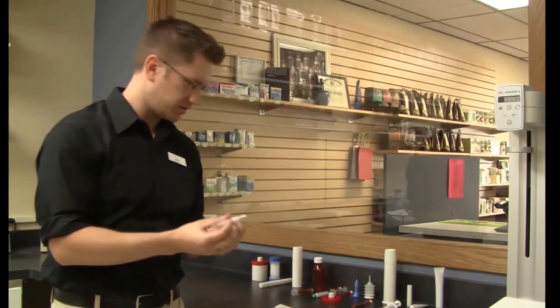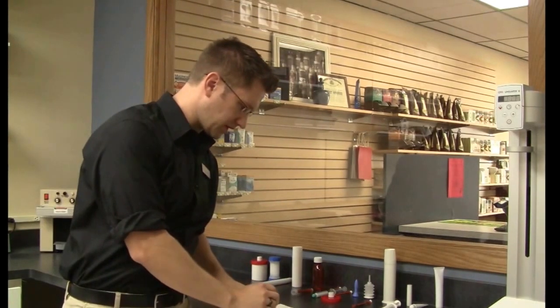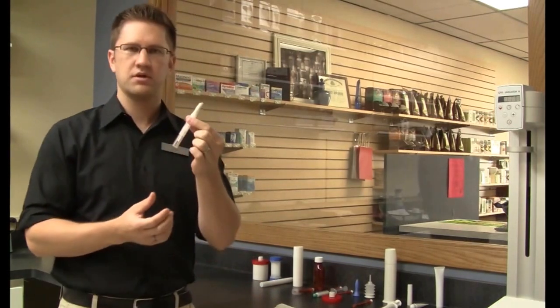With that first bit of cream you can just wipe it off on a paper towel or any other towel and it's all set to go.